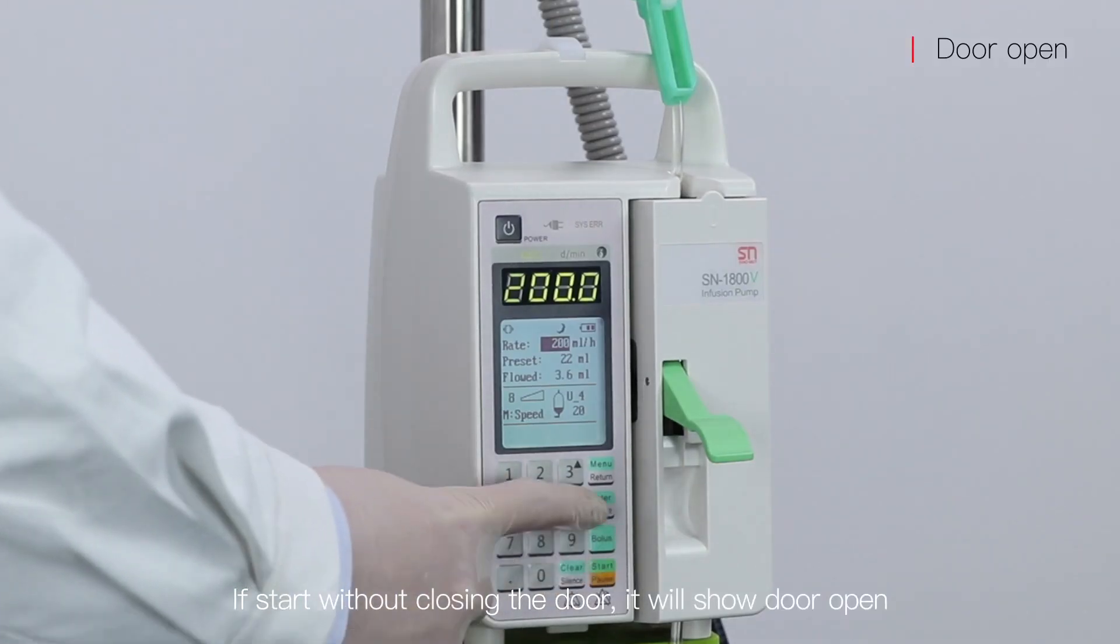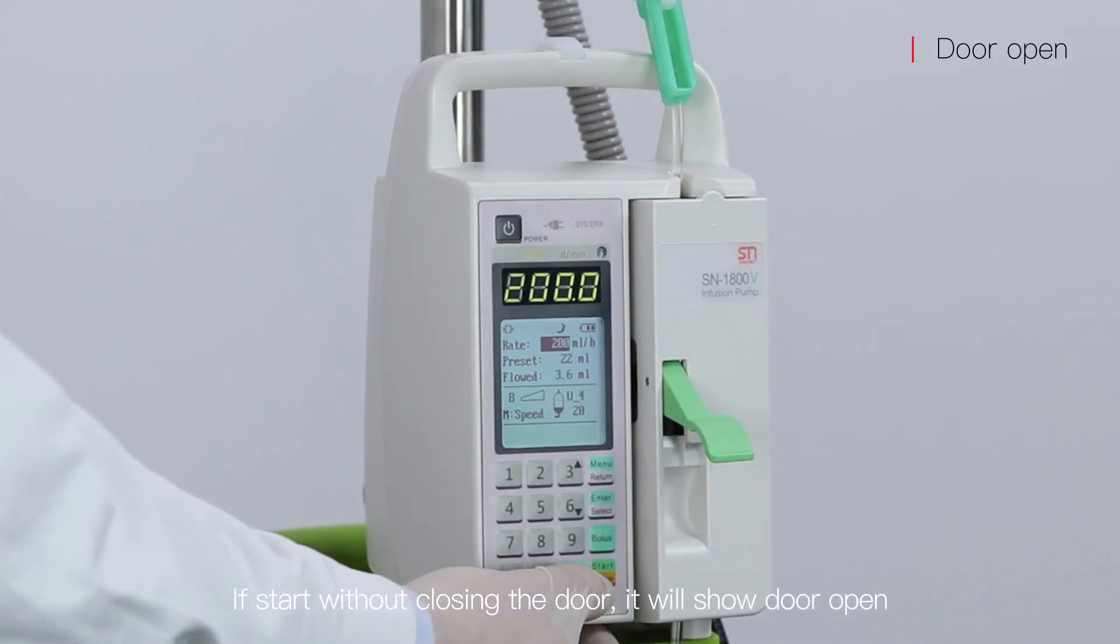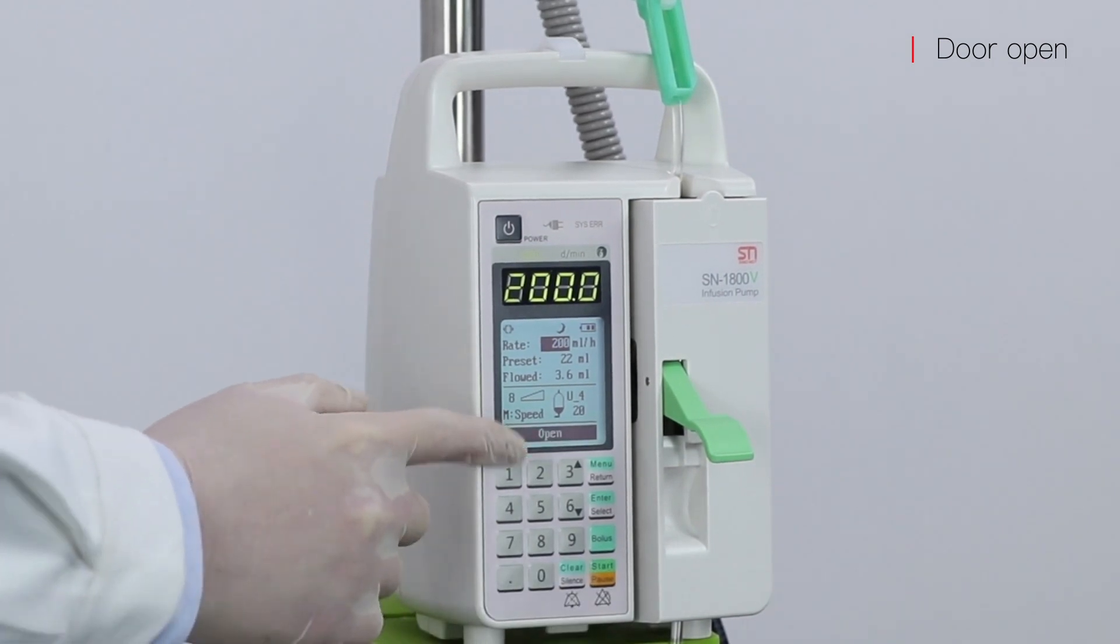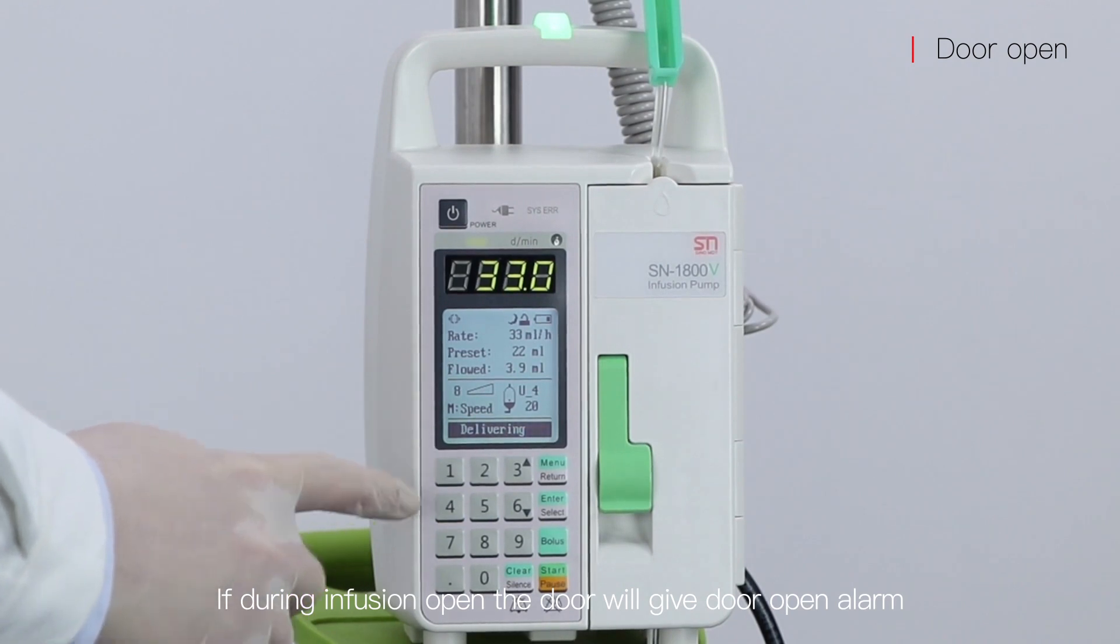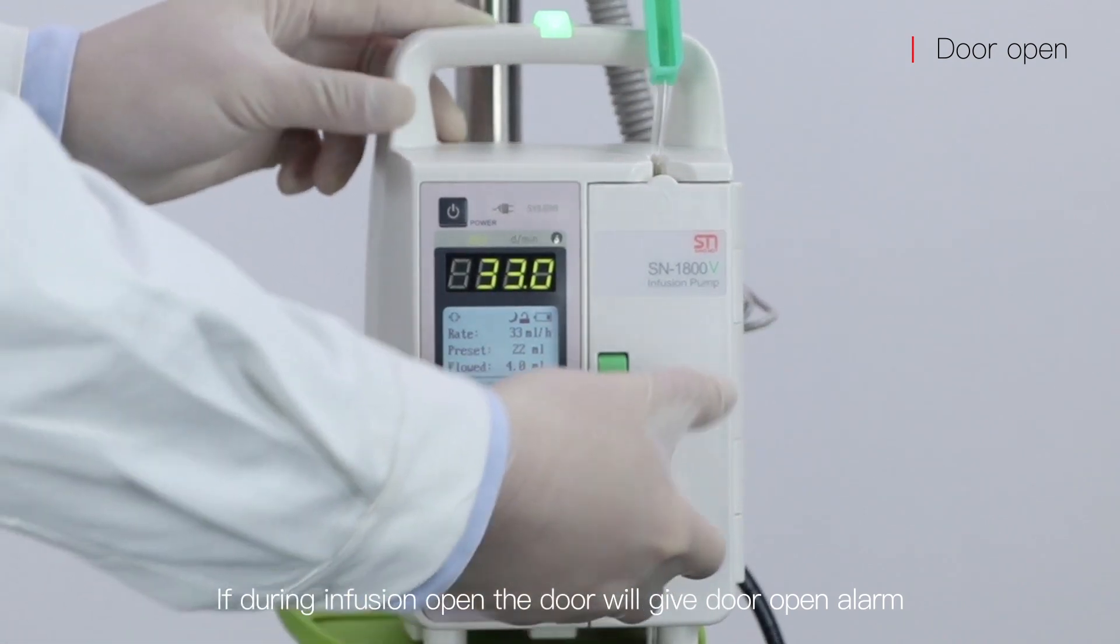If you start without closing the door, it will show door open. If during the infusion you open the door, it will give you a door open alarm.